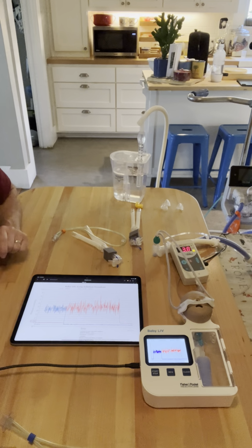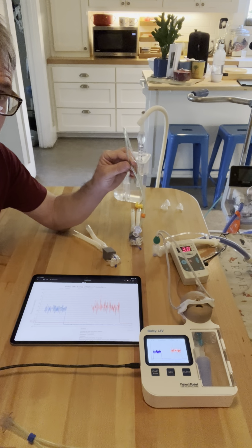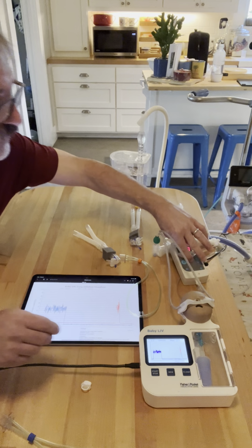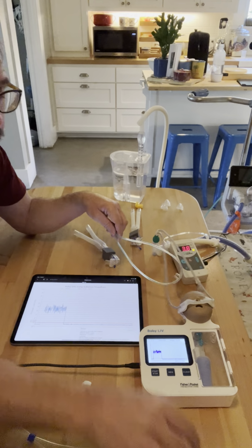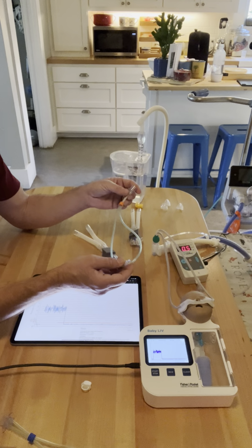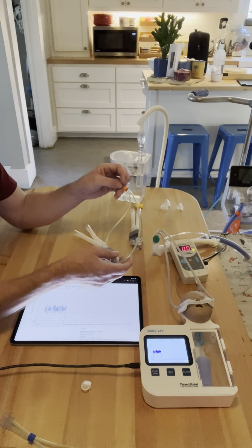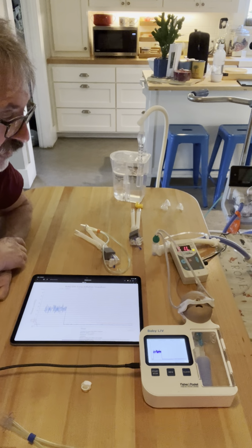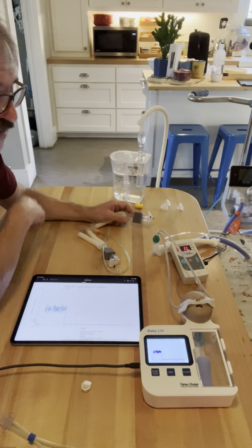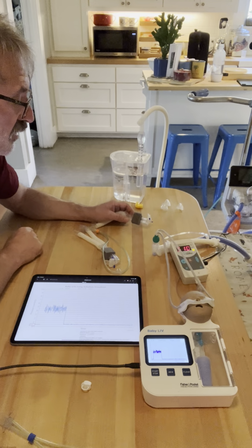So the green OJ2 cannula has larger bore tubing than the orange ram. So basically we've essentially demonstrated that the size of the tubing on the ram cannula, in my opinion, is not any larger than its competitive cannulas on the market. In fact, it appears that they're actually smaller. The cannula that performed the best for this particular demonstration was actually the largest cannula that F&P sells, which is the green OJ2.